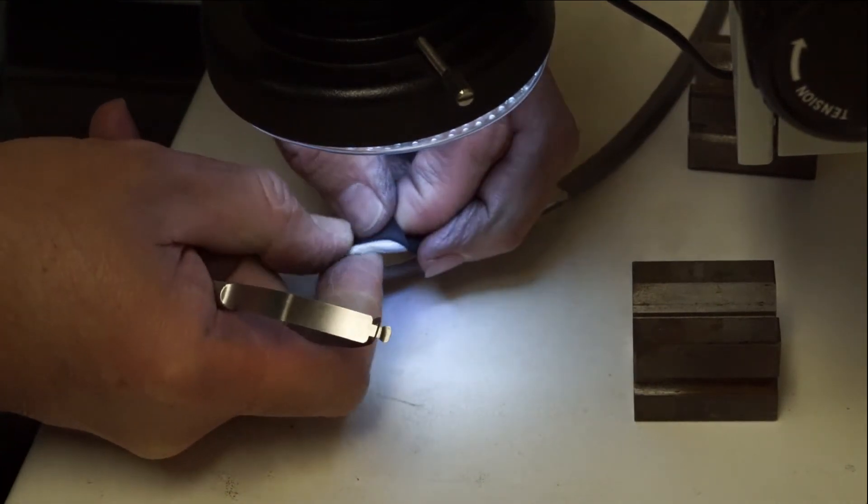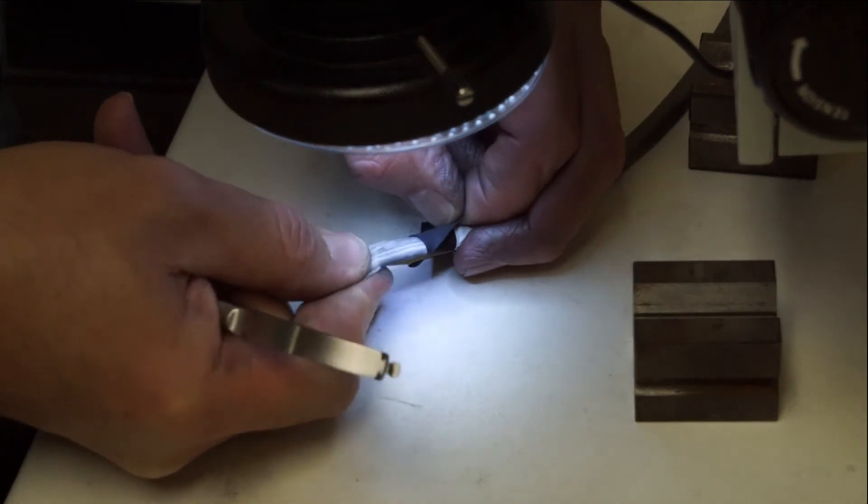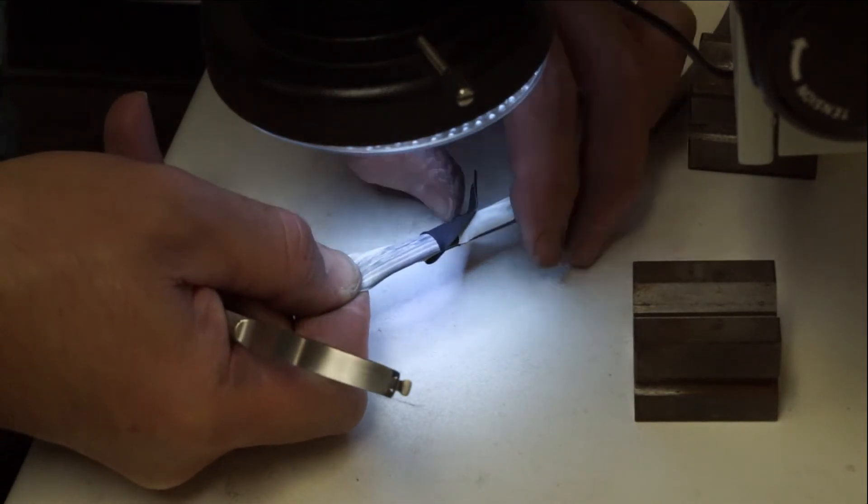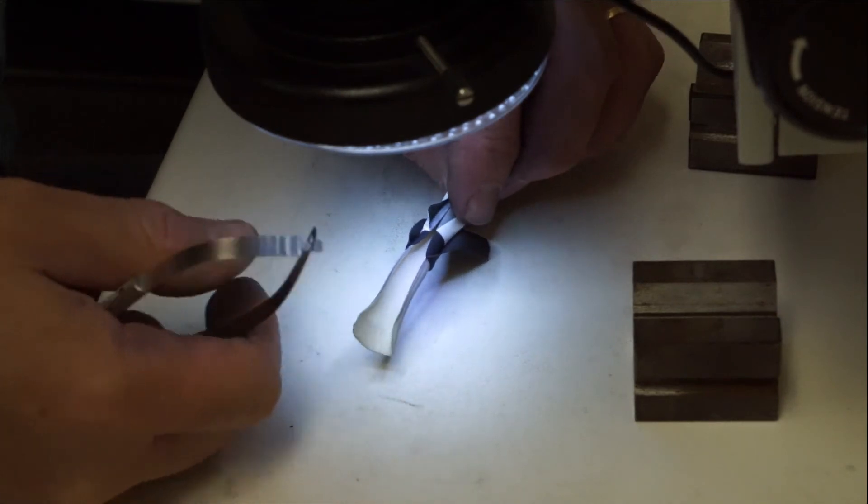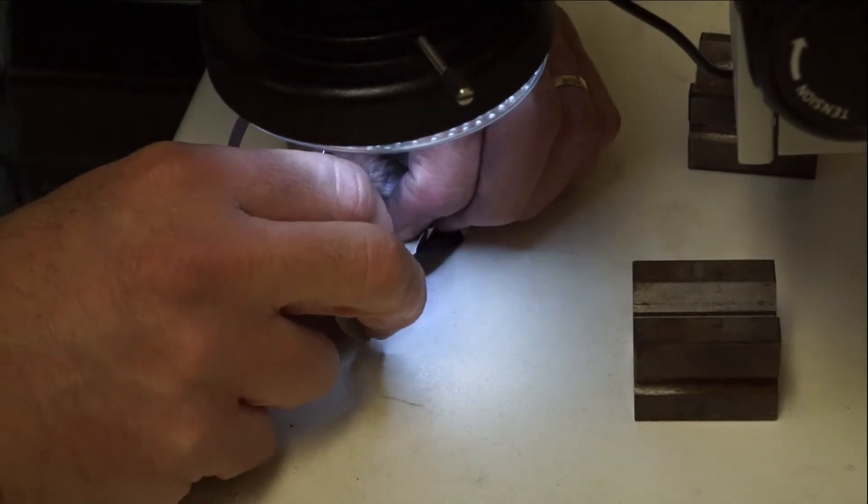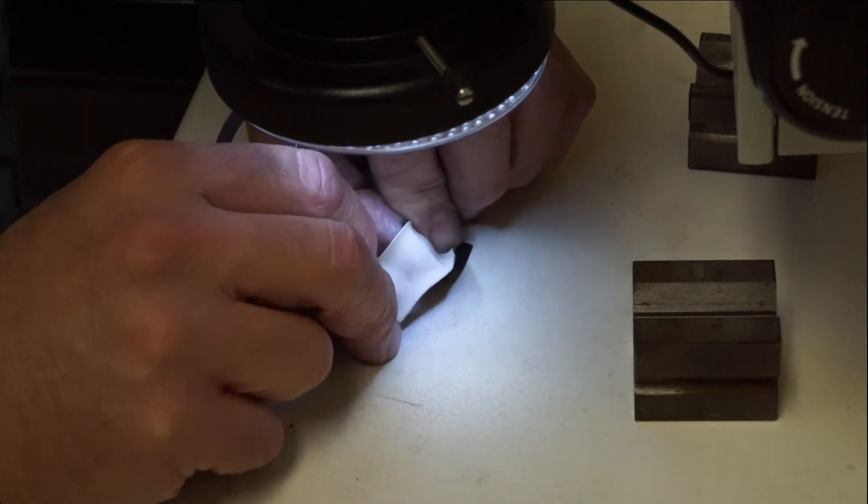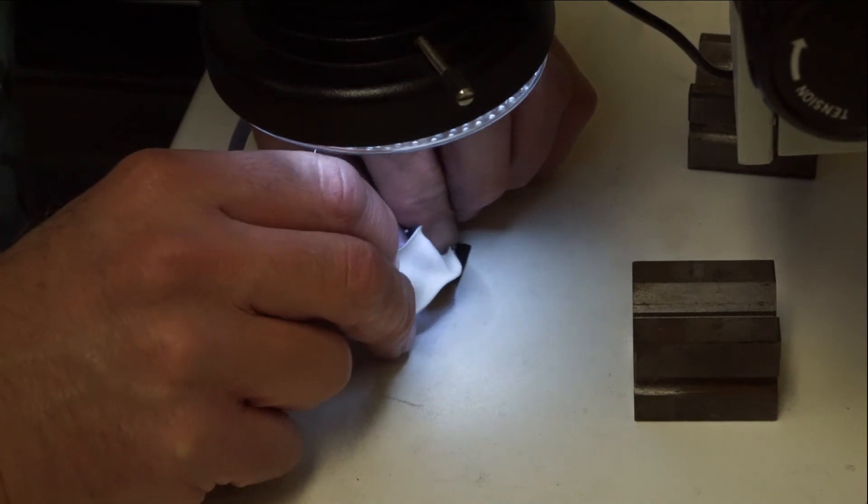The inner layer of the channel is made up of a condensed ePTFE and needs to maintain a smooth surface underneath for the purposes of sliding the biopsy instrument in. After eight months of heavy usage we can see the inner surface holding up well without any significant damages.